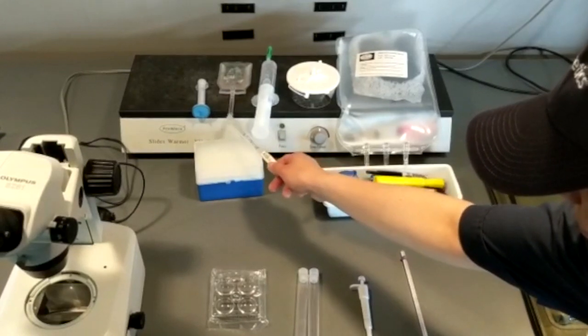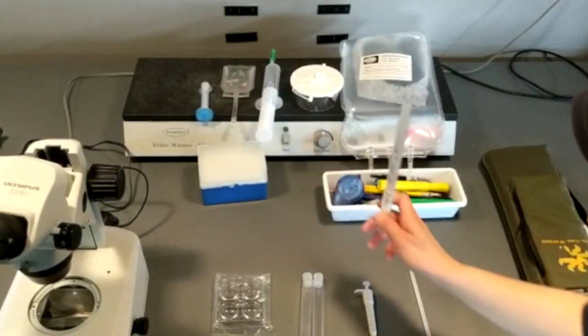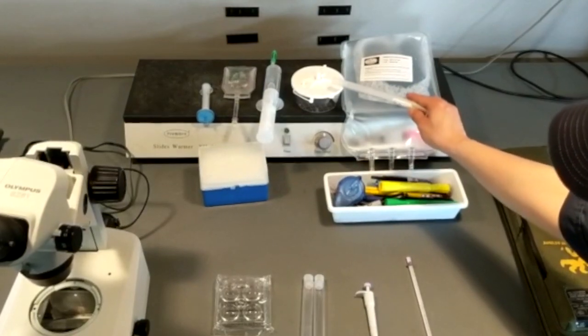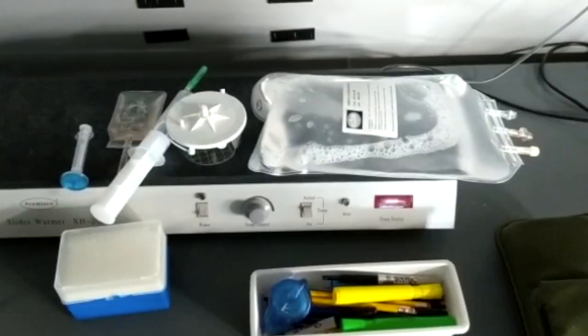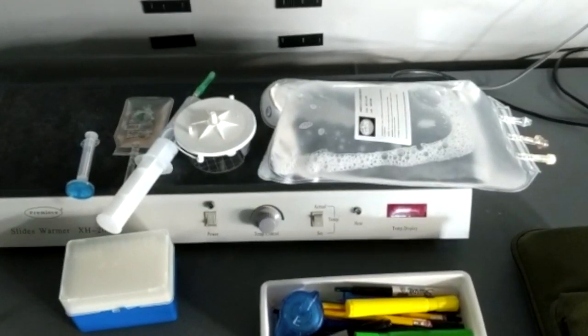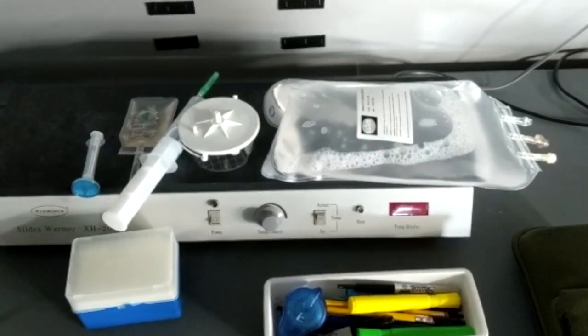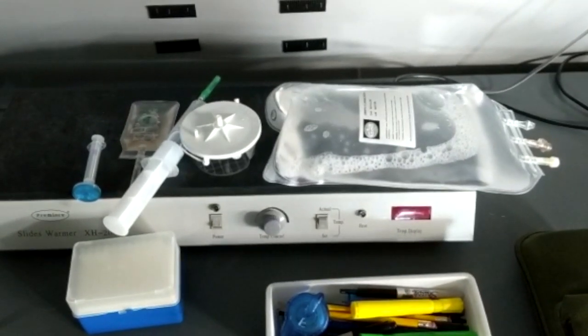Holding media, a flush filter, and flush media. The holding and flush media have been previously warmed at a temperature of 90 degrees Fahrenheit or 32 degrees Celsius.